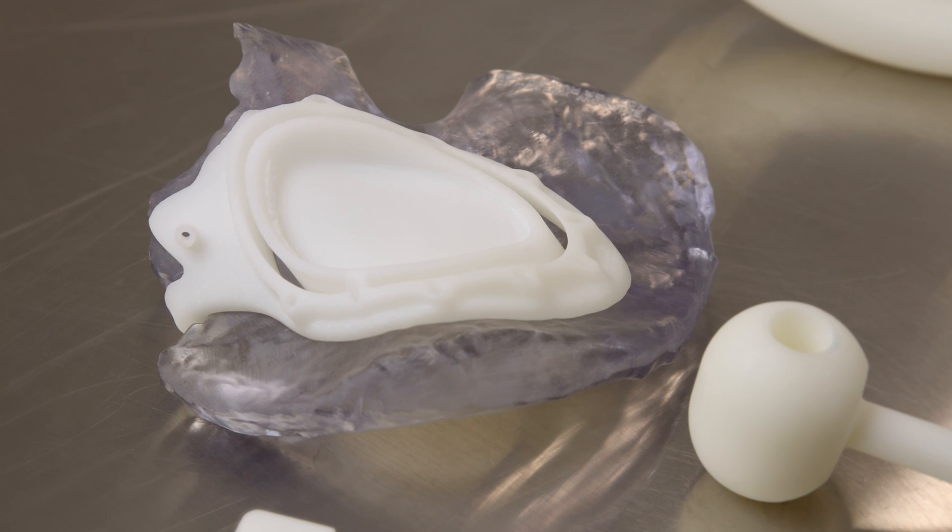One thing I've noticed since I've been working with Restore 3D is that I use our intraoperative navigation system much less, and the reason for that is how good the cutting guides are. Computer navigation in surgery is great—it's fascinating to see, medical students love it—but it does add a lot of time to the case. It adds a lot of radiation to the patient.